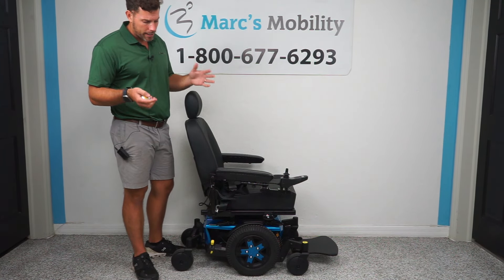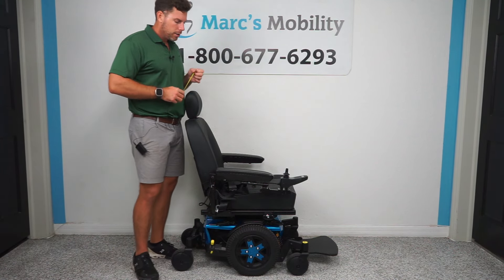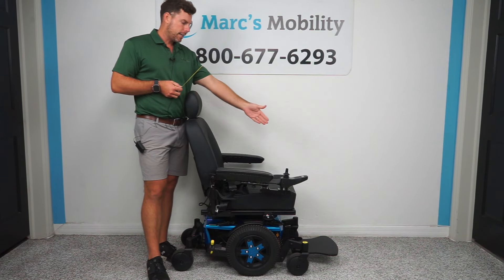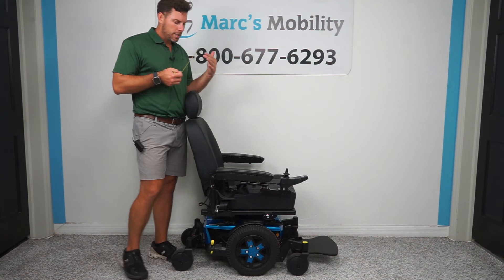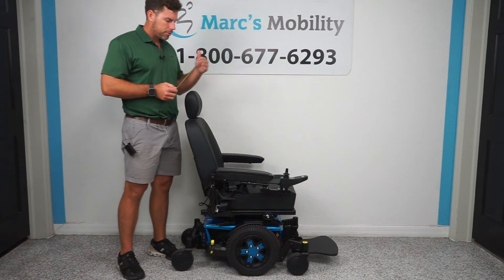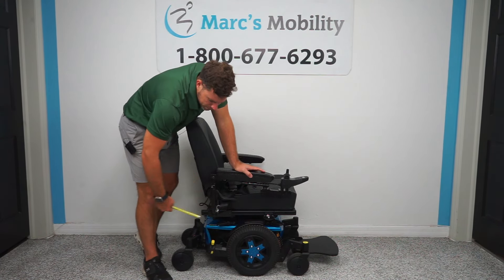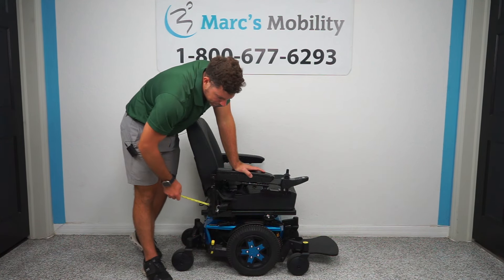It's a really high-quality brand, and in their mid-wheel drive chair like this one, you're going to have a 14-inch drive wheel located directly in the middle, so mid-wheel drive is going to turn pretty much on its own length. This has an XL footplate which may throw off the dimensions just a little bit, but it will still turn roughly on its own length. You are going to have 14-inch solid drive tires, and then caster wheels that swivel around — they're six inches, two in the front and two in the back.